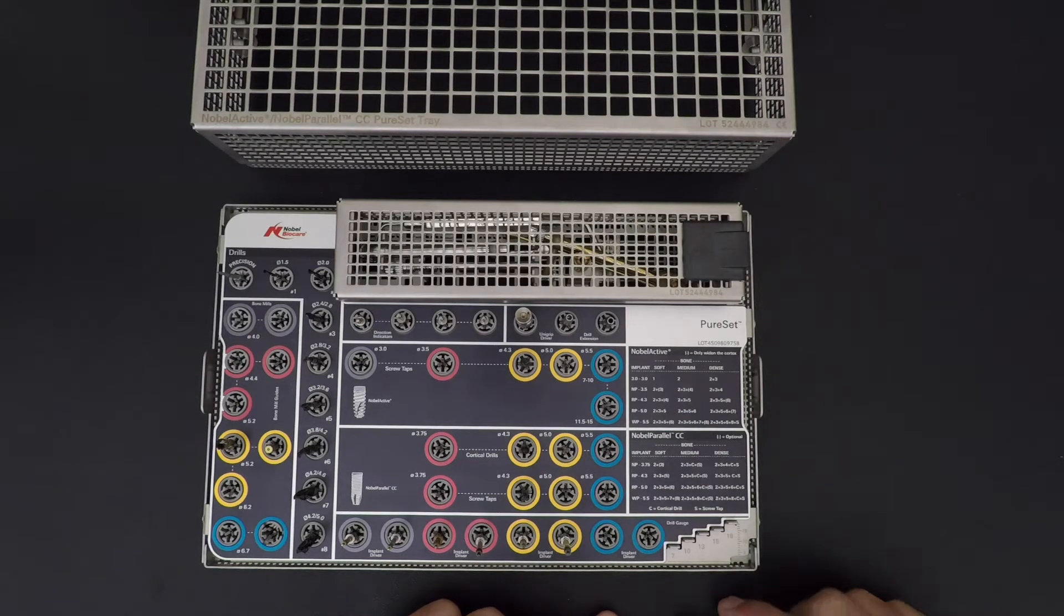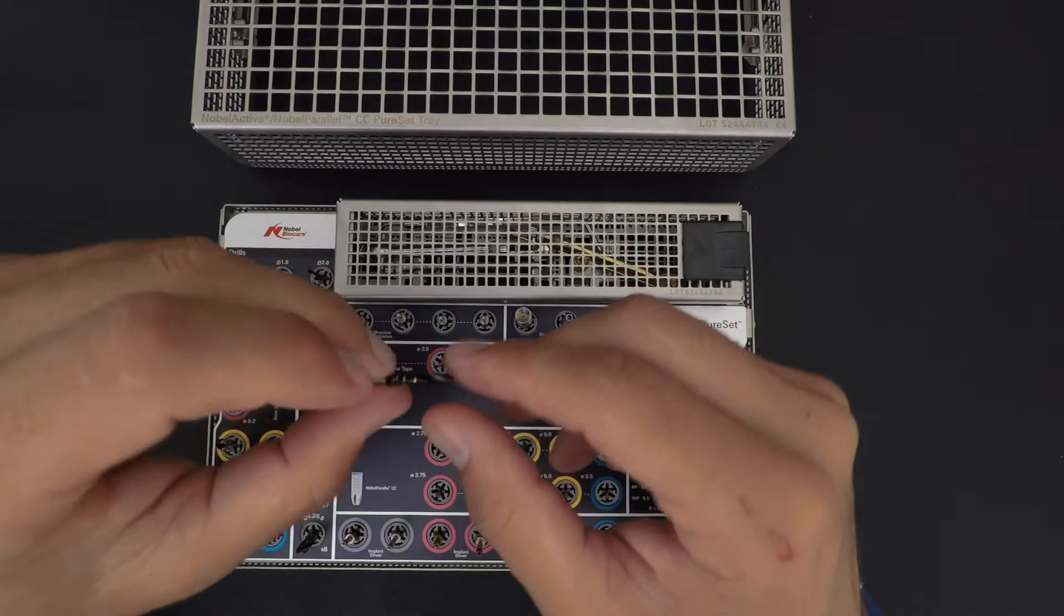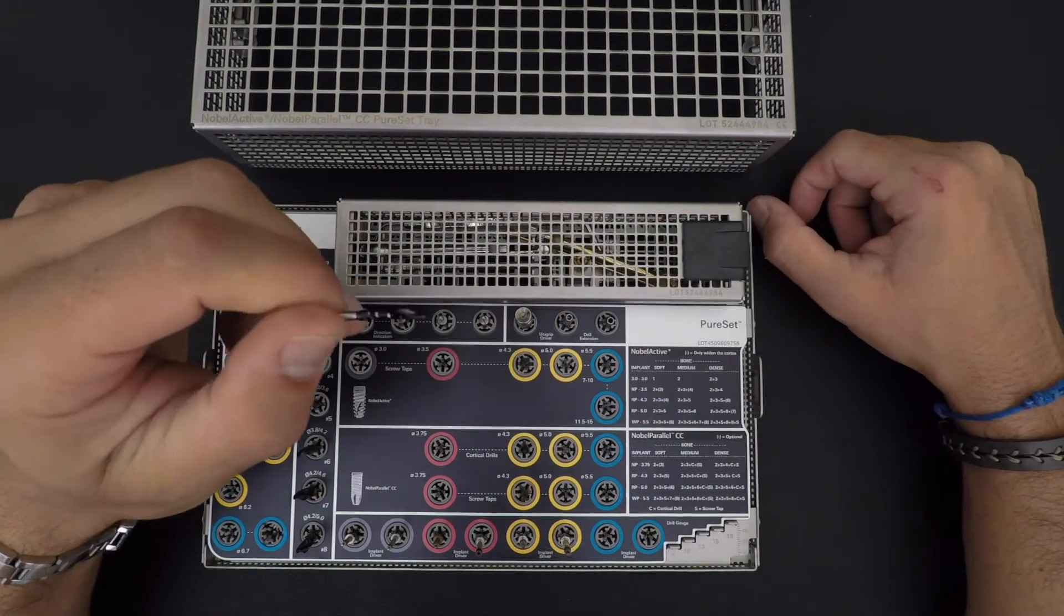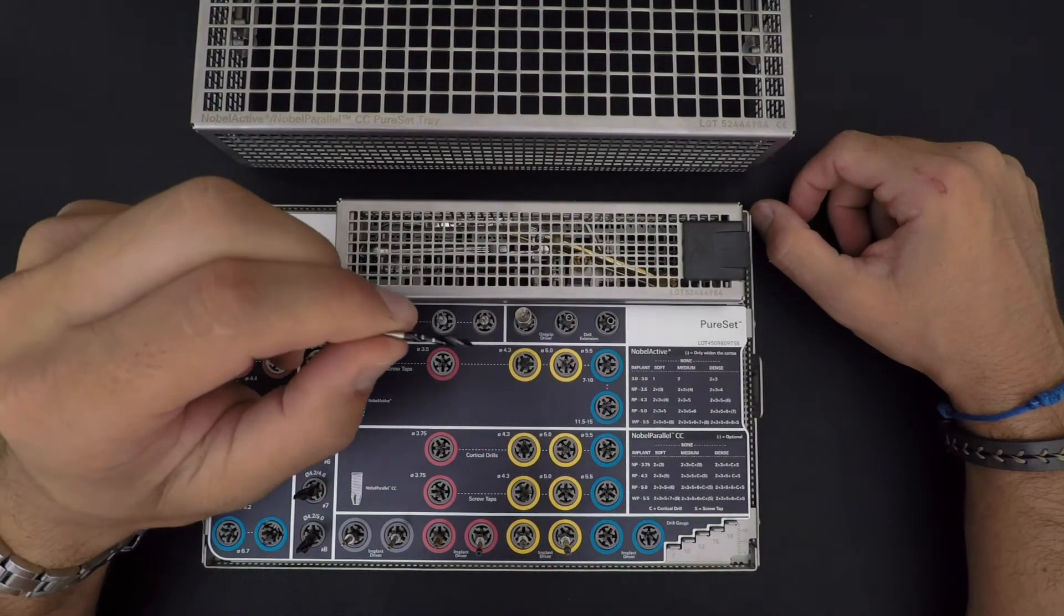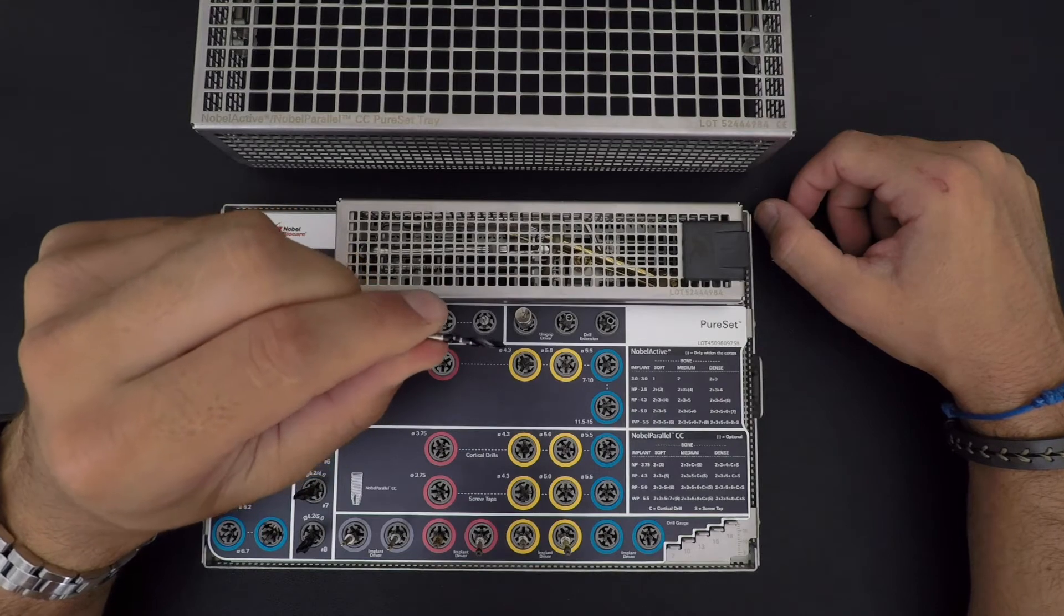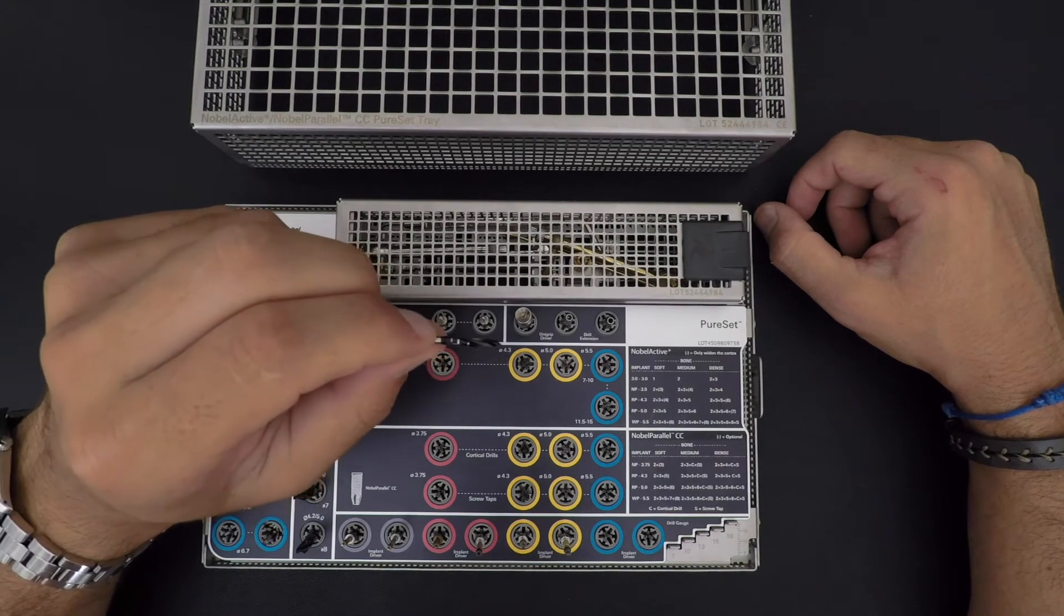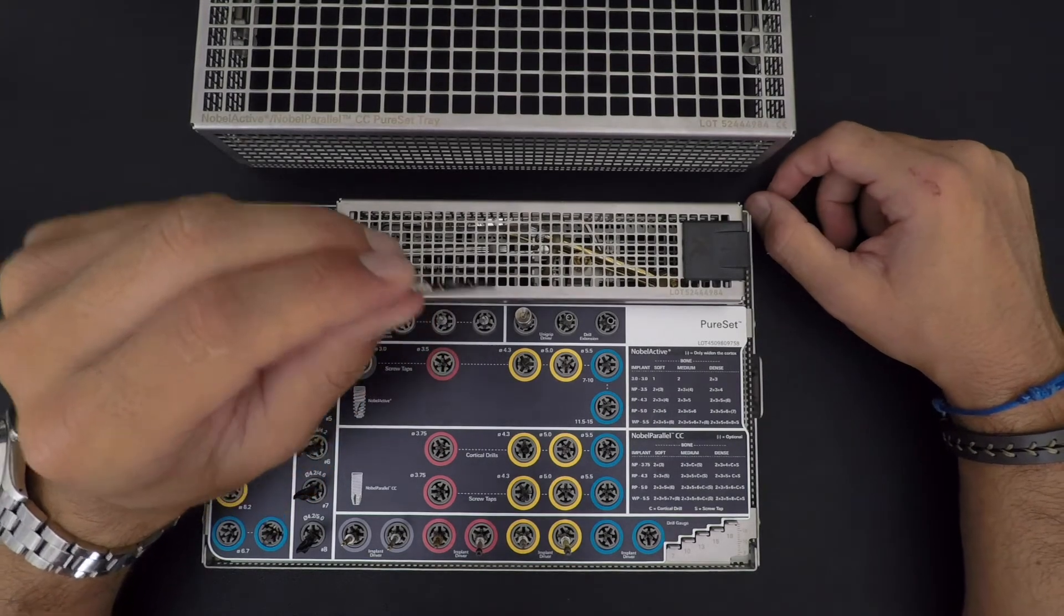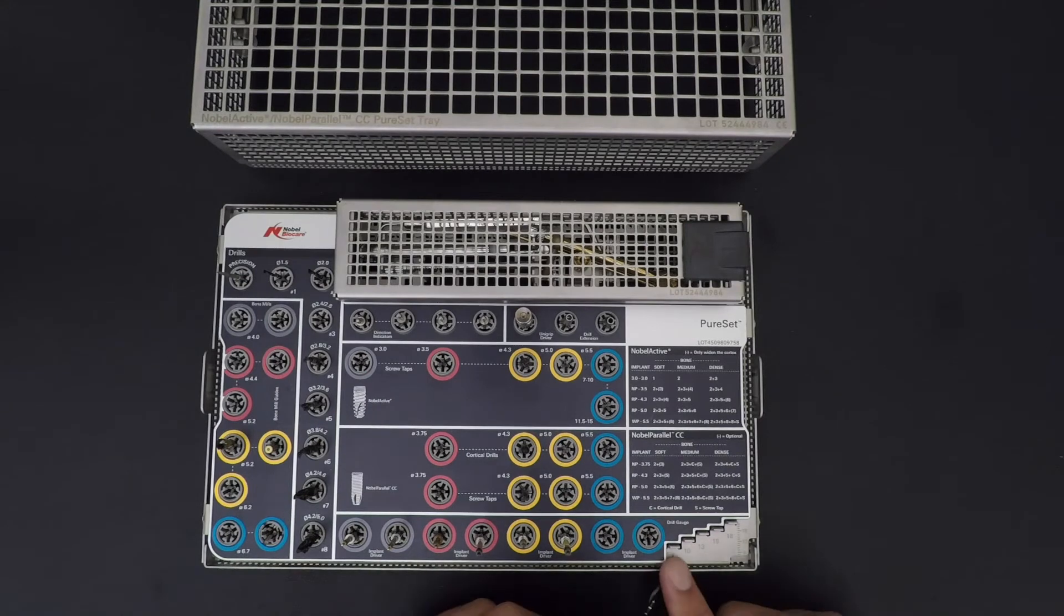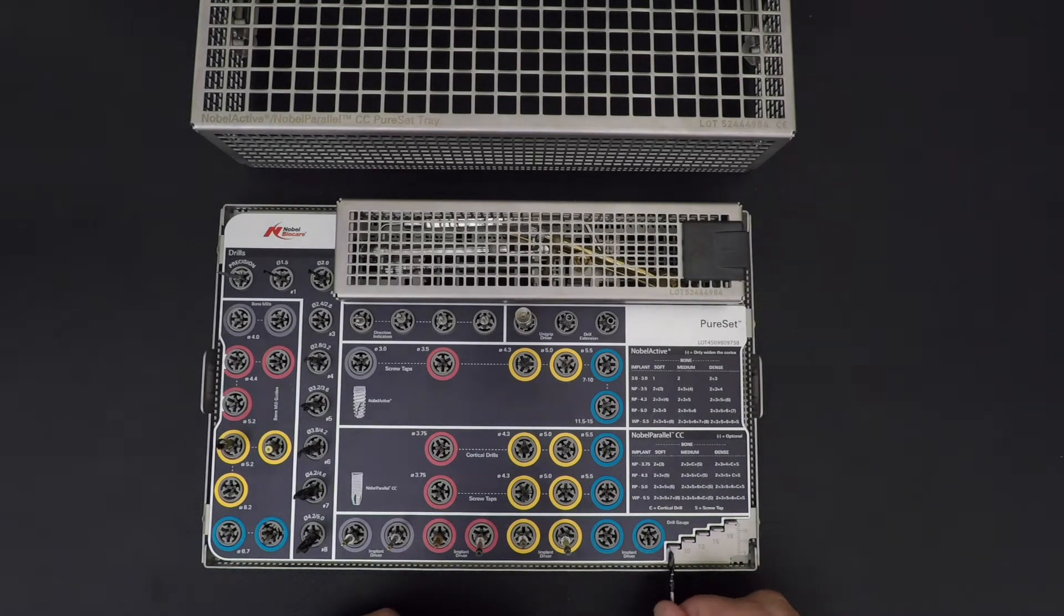You have your marking on the drills, but you don't really remember which one is what because you're using different systems and each system might have a different marking. So here goes to 7 to 18 - you just place your drill on the mark and you can see.